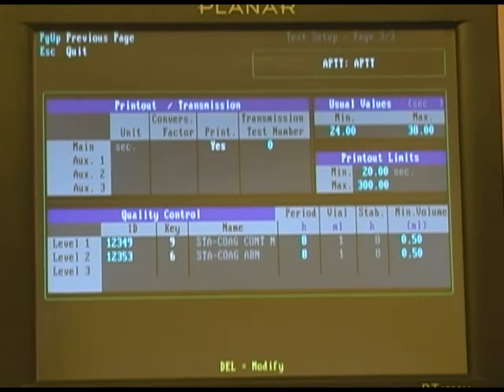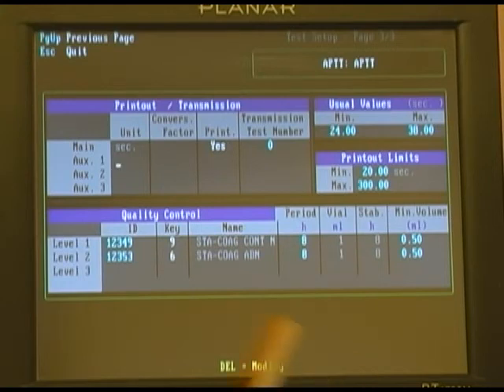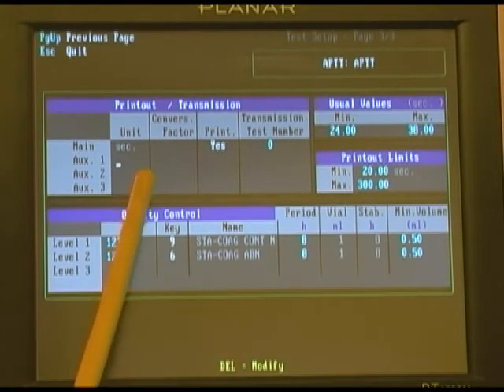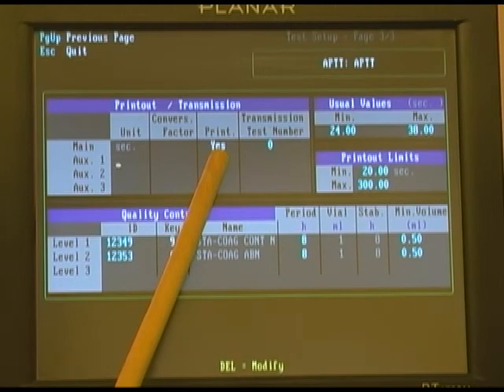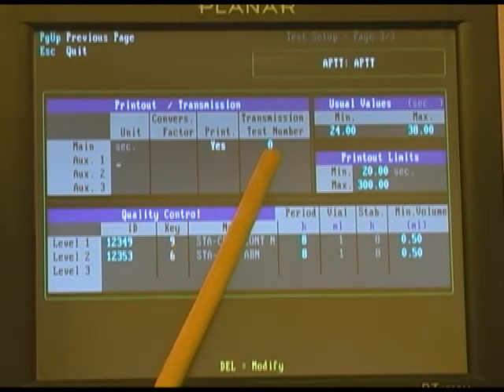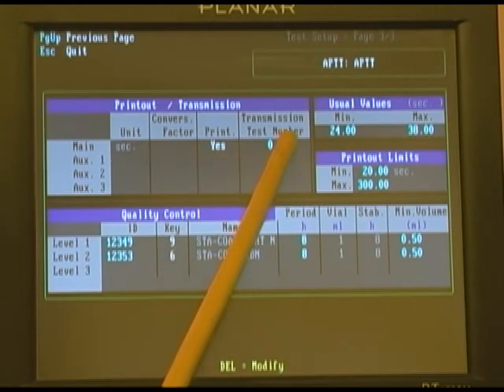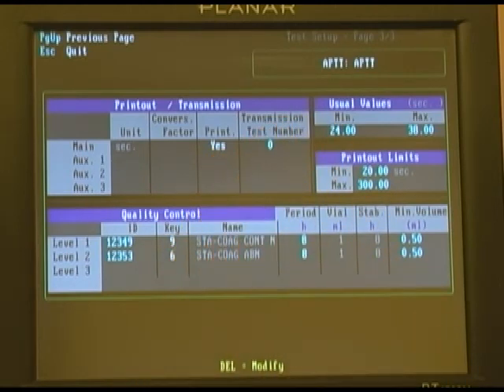The QC does need to be run. The printout main units will be in seconds. We do want the results to print out, and then depending on your LIS you can set up the transmission number for that result to come across.